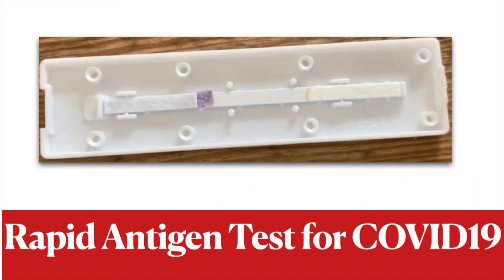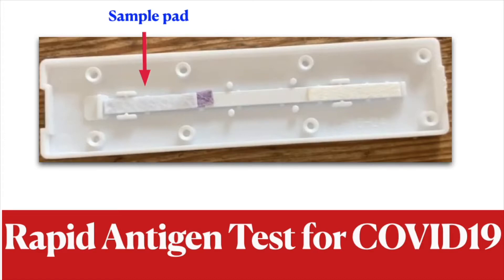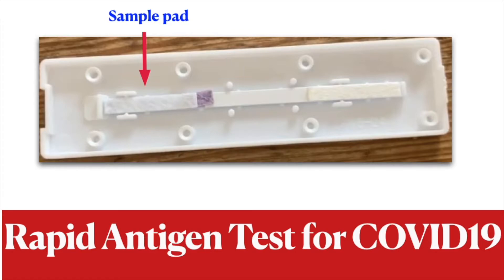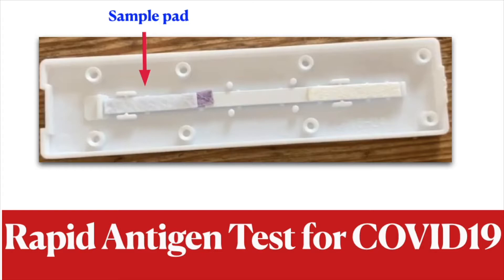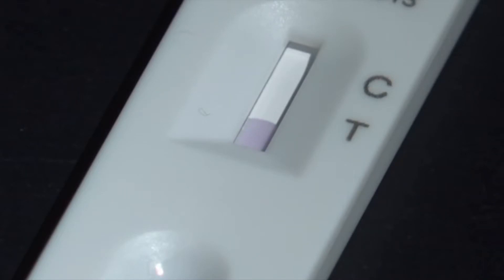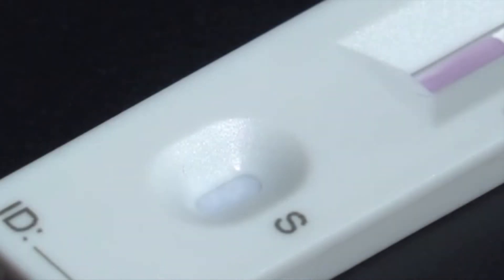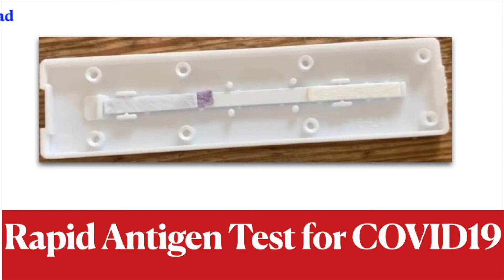You will see a sample port where your sample will go. Your sample is usually a swab that you insert into your nose or into your tonsils area, and you're going to add a solution to it for interaction with the antibodies that are on the cartridge. That's the port where your prepared sample will go. Thanks to the membranes embedded as part of the test, the sample will migrate from the location where you place it towards the end, and at each step different reactions will take place.